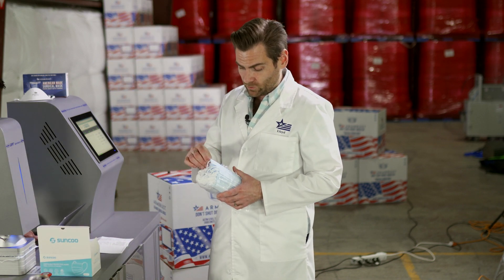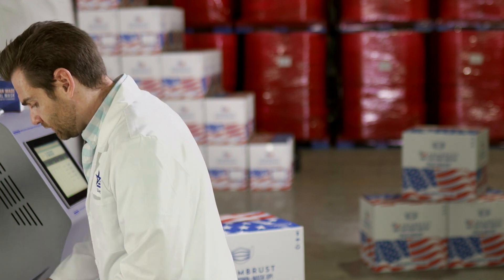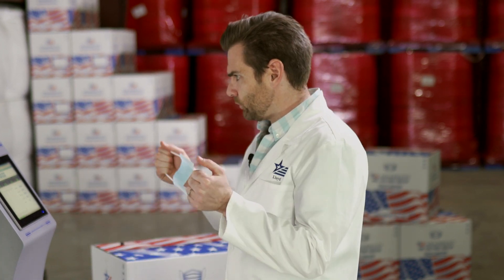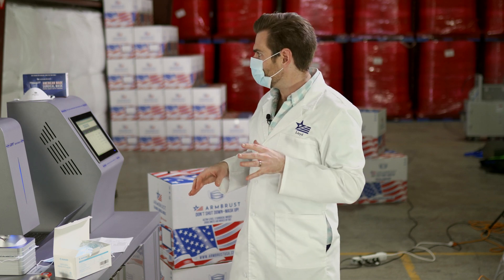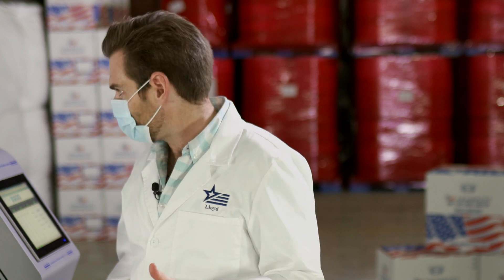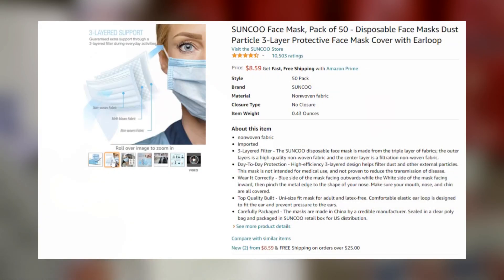Let's take a look at these masks. These are very basic masks — this is the mask you're going to see when someone says 'disposable mask.' It's this blue mask. The ear loops are really good. Trying it on — yeah, it's like if I were to work at a nail salon for 17 years, this is all I could smell. There are worse masks in terms of smell. They're sealing the mask inside, which is good.